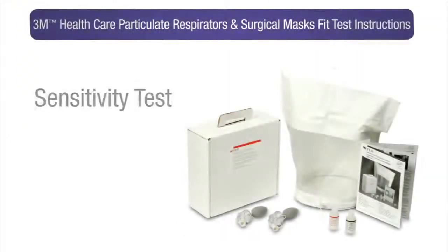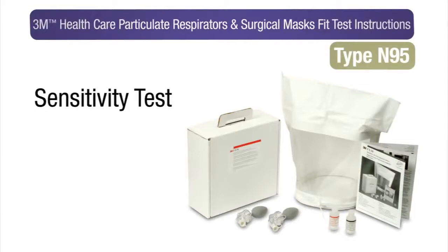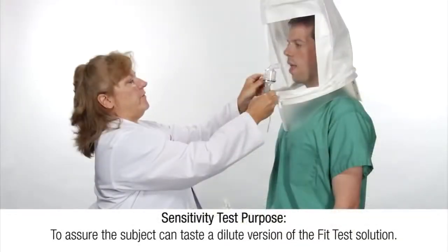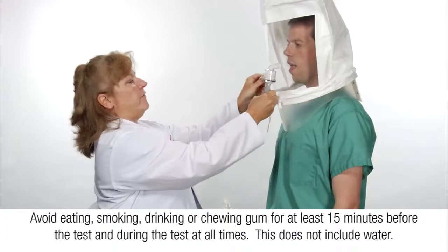A sensitivity test is conducted before the fit test to determine if the healthcare worker being tested can detect the test aerosol at very low levels. The sensitivity test solution is a very dilute version of the fit test solution. The subject must avoid eating, smoking, drinking, or chewing gum for at least 15 minutes before the test and during the test at all times. This does not include water.